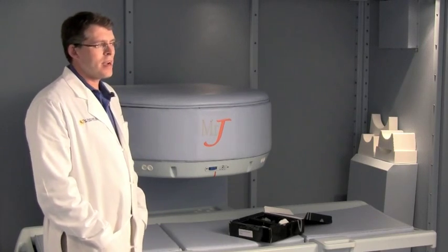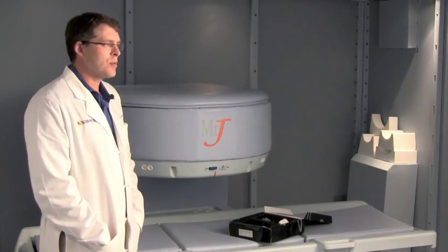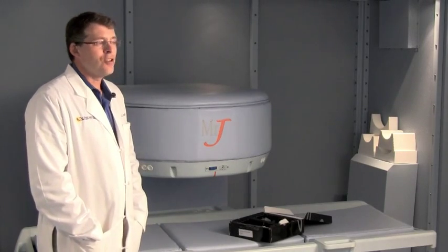As time has gone on and people become more active, the technology has improved and now the knee replacement is designed to do a lot more.